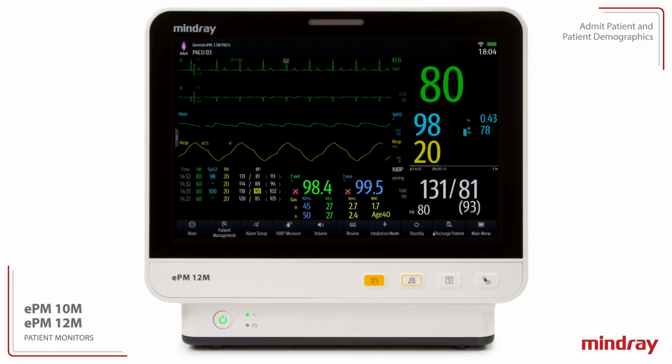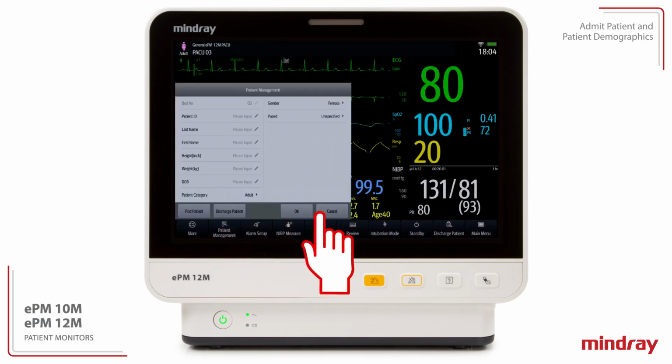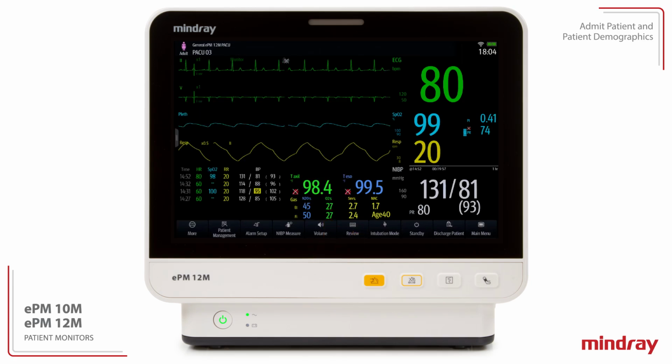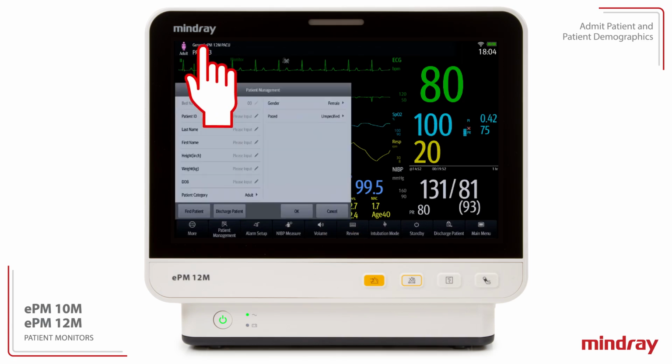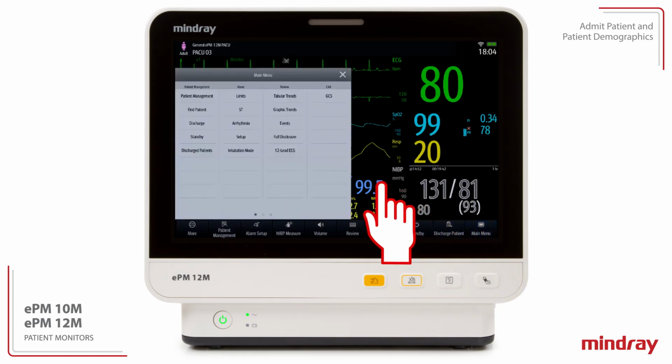Admitting a patient restores pre-configured default settings and clears the previous patient's information. To admit a new patient, open the Patient Management dialog by selecting the Patient Management Quick key or select the Patient Information area in the top left corner of the screen. The Patient Management dialog may also be accessed by selecting the Main Menu Quick key, then selecting Patient Management.